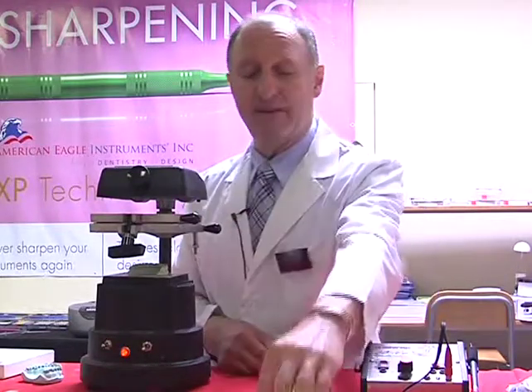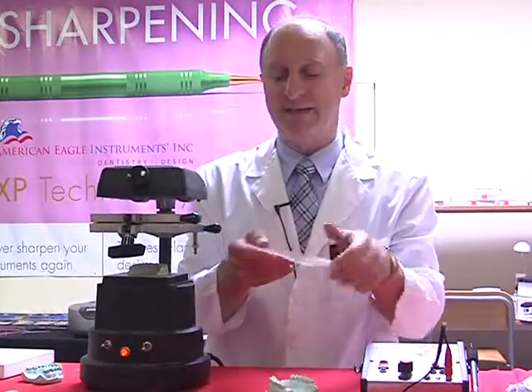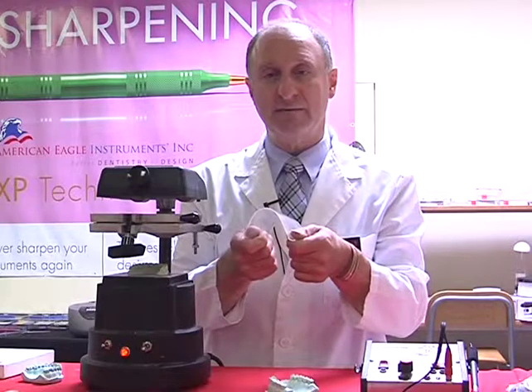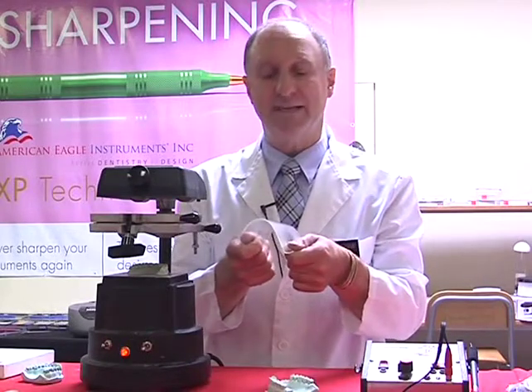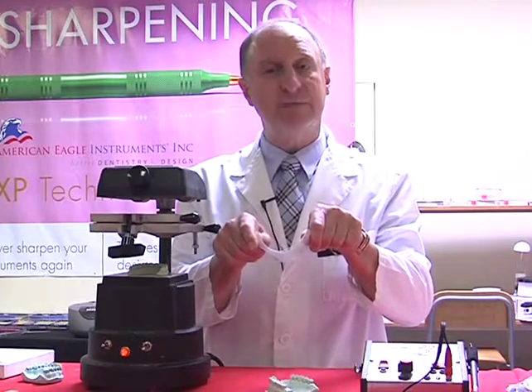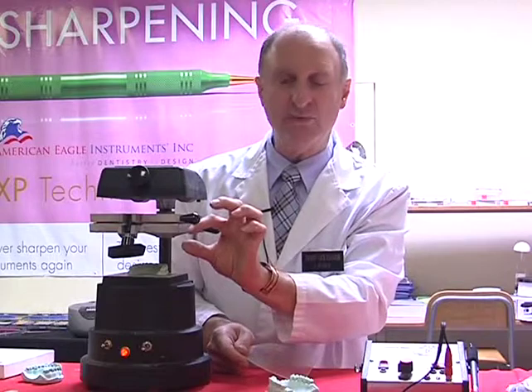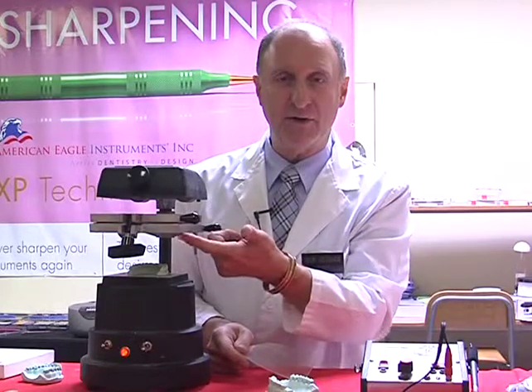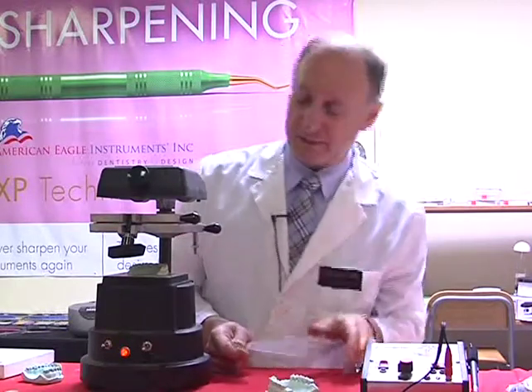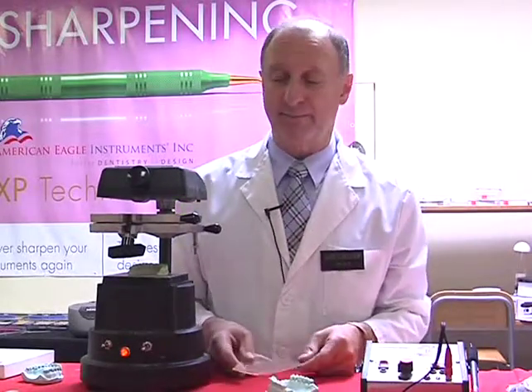Let's hold up another piece of material just to give you an idea of what will happen when it's heating. The first thing that happens is it goes upwards to the heating element, and then it goes a little bit wavy, and then it droops down. From the time it droops down, we want to let it drop around 1/4 of an inch from the bottom part of the vacuum forming unit. Once it does that, then we know we've got sufficient timing.